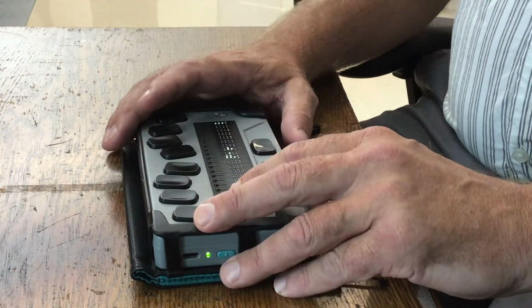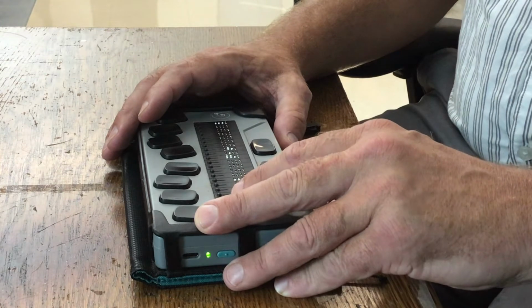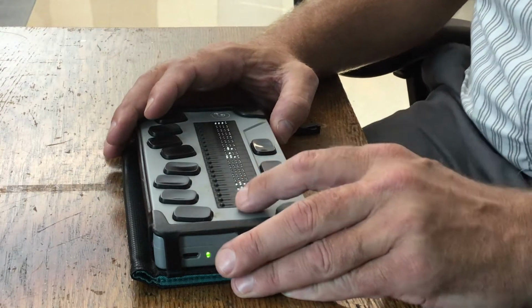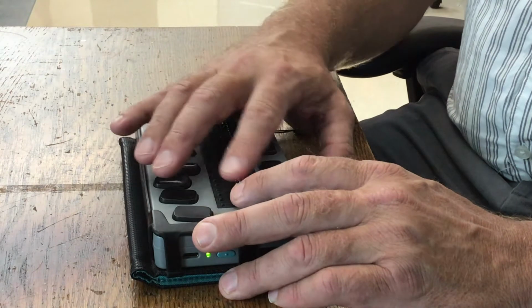Now, we all know that to connect it to an iPad, you go to Terminal, Connected Devices, and then you press Enter on the name of the iPad that you want to connect to. I want to talk about some of the other features that are available in the Chameleon.